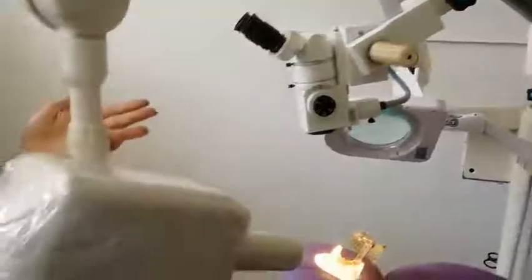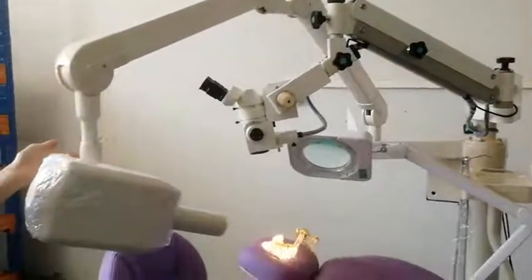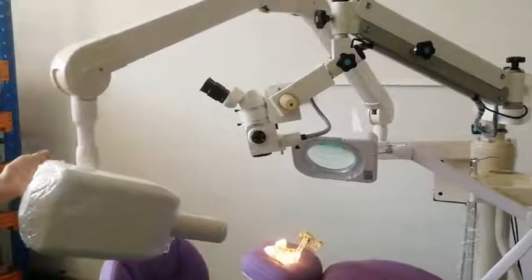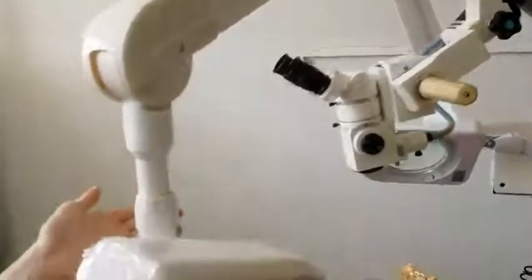This one is the built-in x-ray. We are the first supplier in China to install the x-ray with the chair, to save space so patients do not need to move to another room.